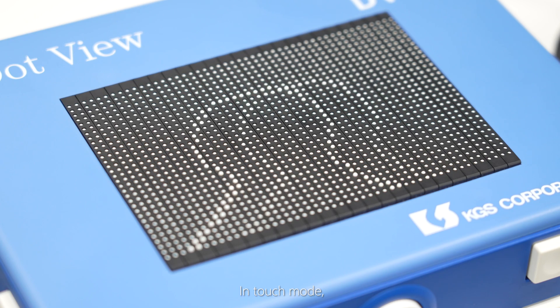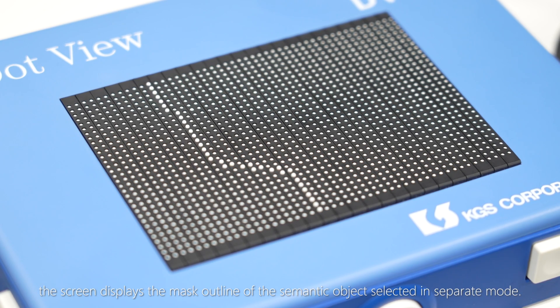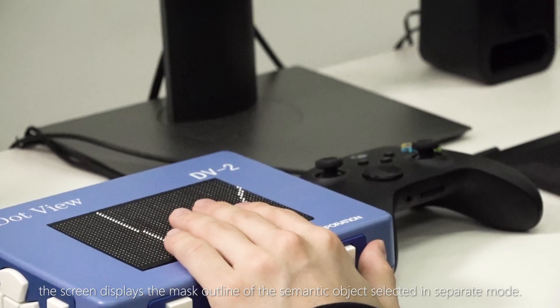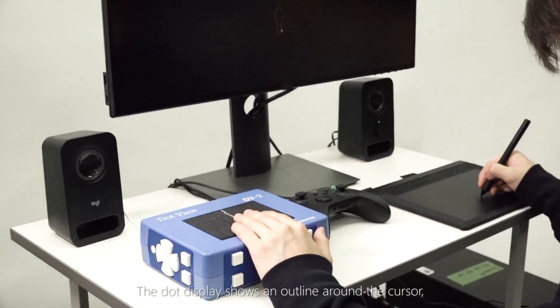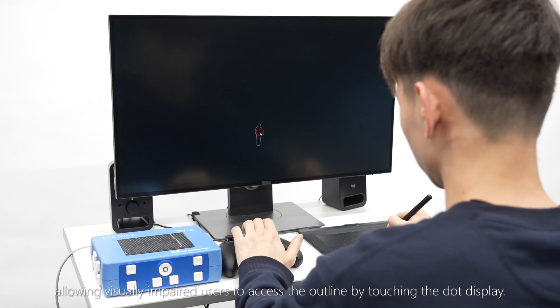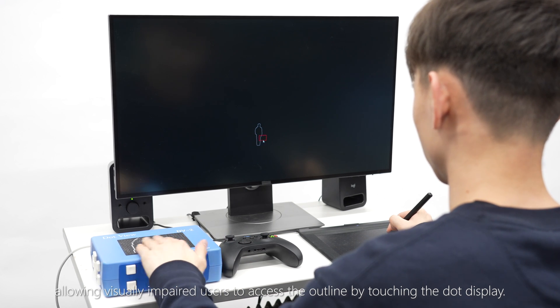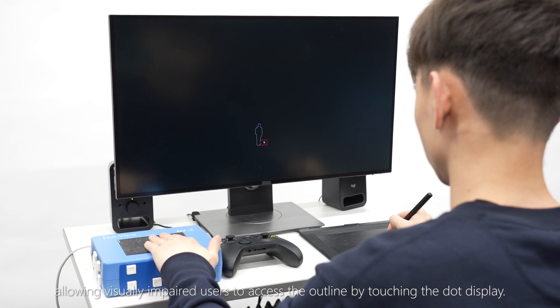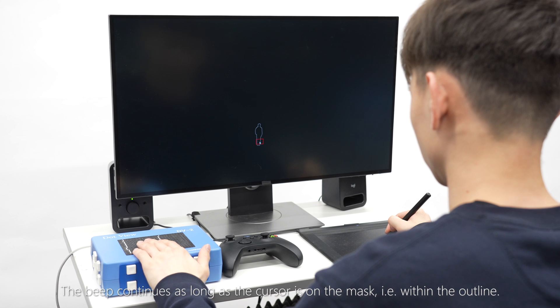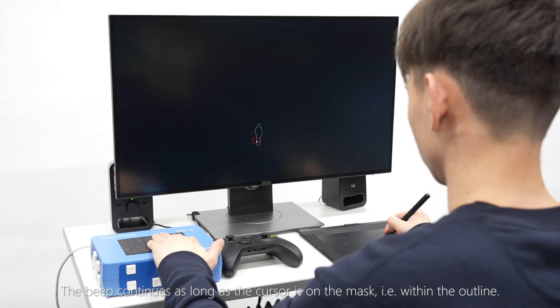Touch Mode is a mode for accessing object shape information. In Touch Mode, the screen displays the mask outline of the semantic object selected in Separate Mode. The dot display shows an outline around the cursor, allowing visually impaired users to access the outline by touching the dot display. The beep continues as long as the cursor is on the mask, i.e., within the outline.